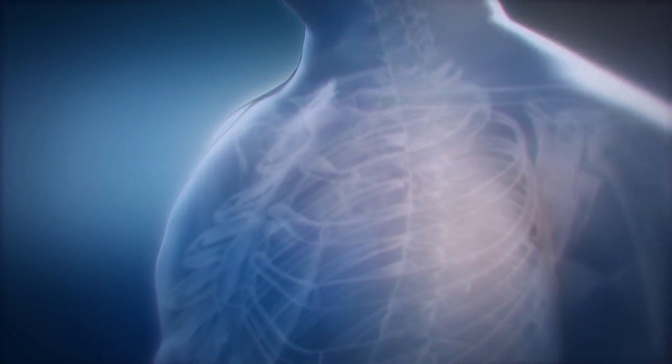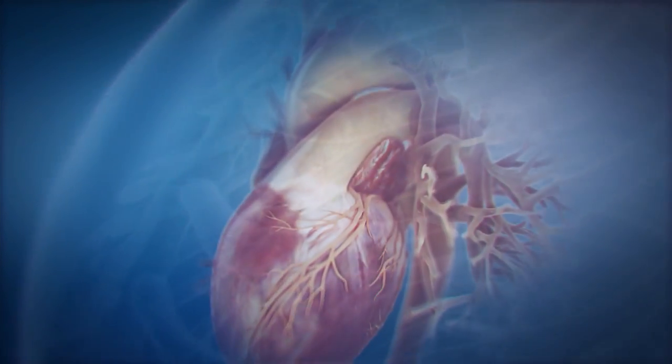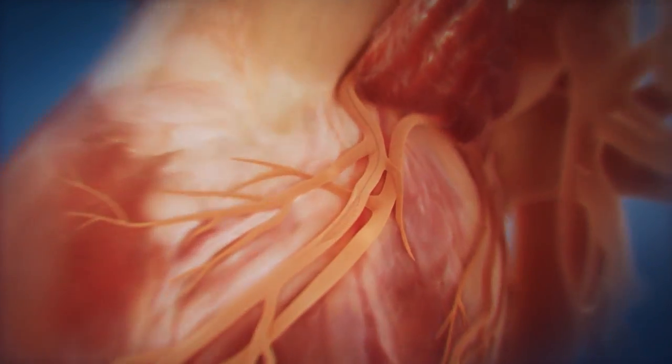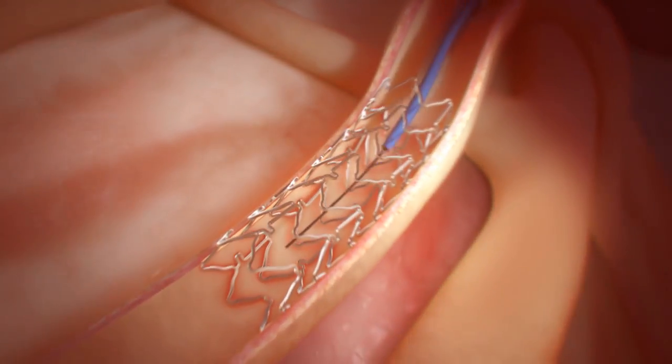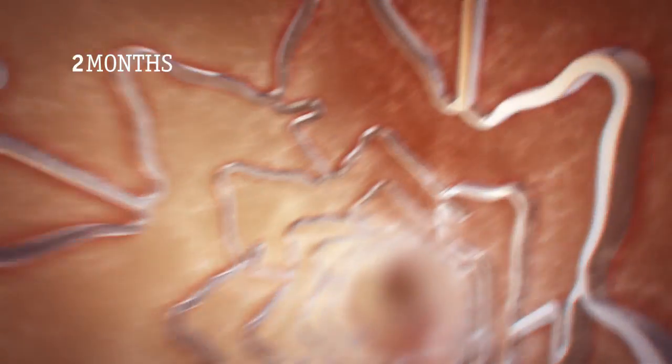What is the goal of drug-eluting stents? With durable polymer drug-eluting stents, the purpose of the polymer is to deliver the drug and maintain coating integrity.